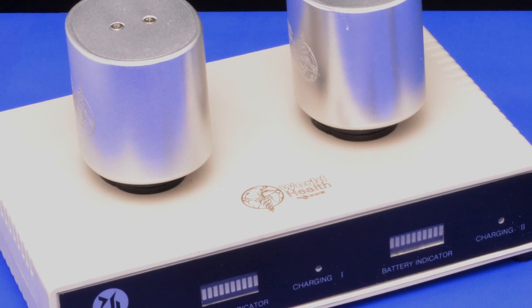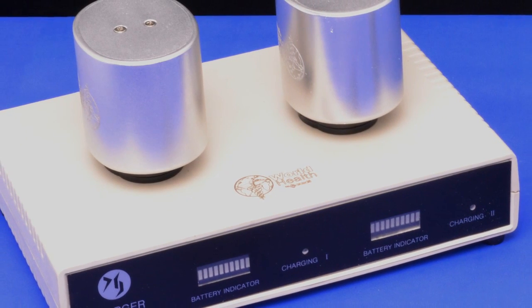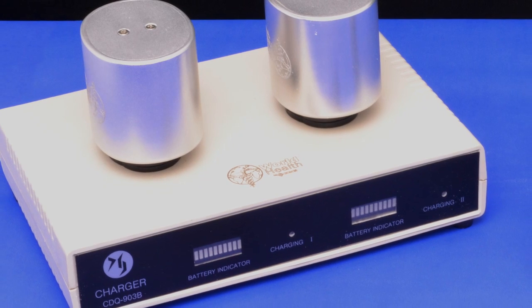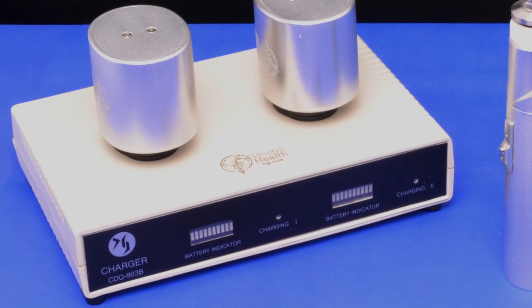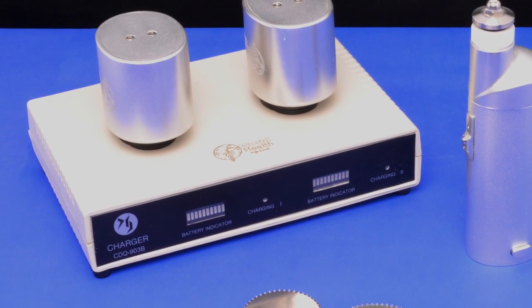The plaster saw is inside a briefcase containing the unit to recharge the batteries, two rechargeable batteries, the handpiece, the serrated blades, the clamping screw, and the presser wrench.